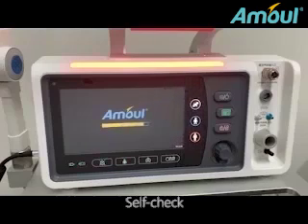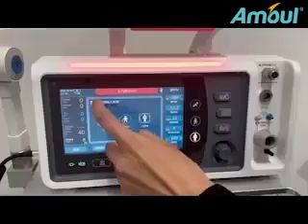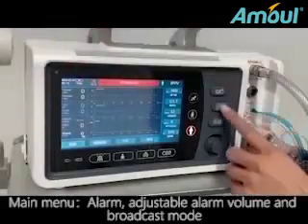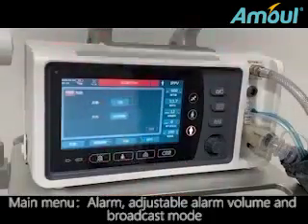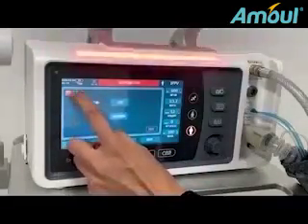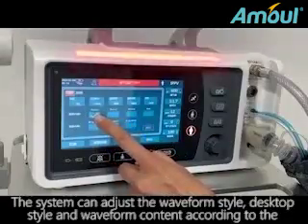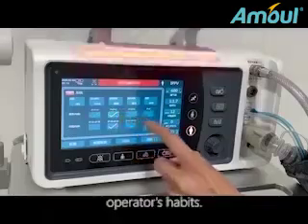Self-check. Main menu. Alarm: adjustable alarm volume and broadcast mode. The system can adjust the waveform style, desktop style, and waveform content according to the operator's habits.